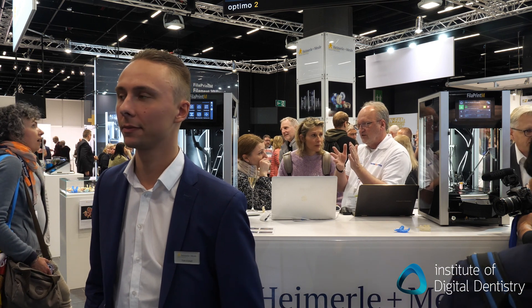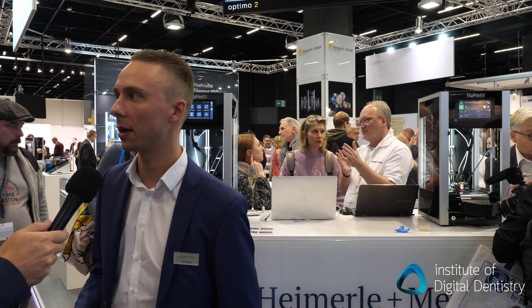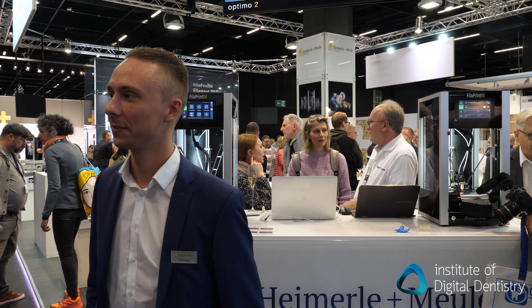Obviously being a filament printer, there's no wash or cure process. It comes out finished, ready to go. That's right. So no light curing, no vapors, no washing. It's just a clean solution for 3D printing. And no smell. That's true. So there's no ventilation required for these machines? We have ventilators but we don't need them — they're just for cooling, fans for cooling.